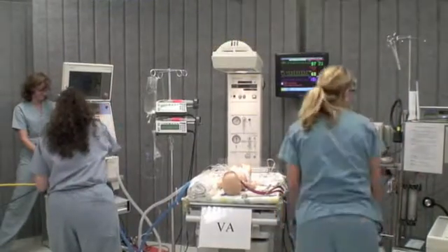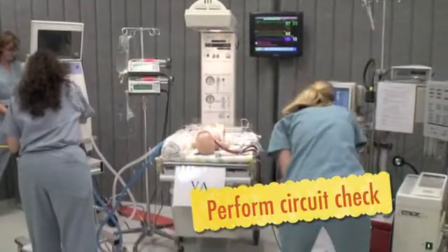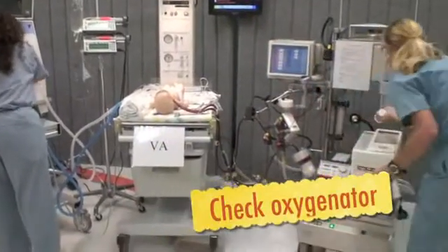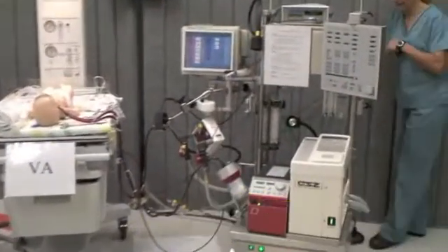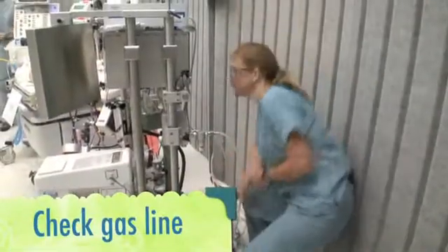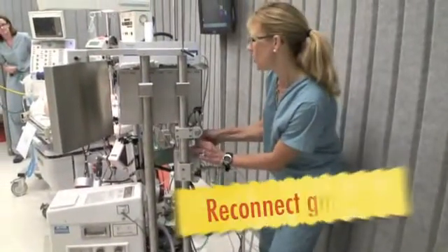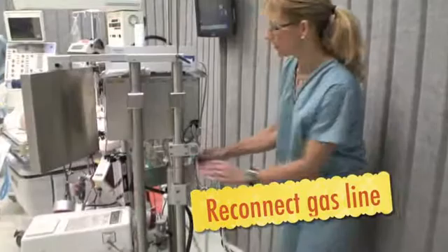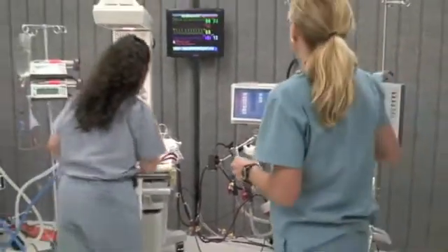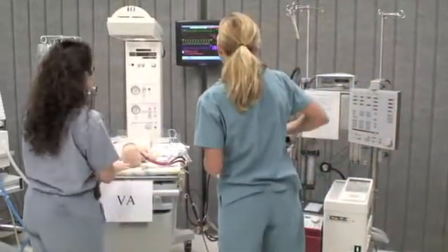I'm going to go to our emergency bed settings. I'm just going to check my oxygenator — it looks like my gas is disconnected. I'm going to connect my gas line. We don't need to come off ECMO. Should we come off ECMO? No, we're not going to come off ECMO. This is going to help here.